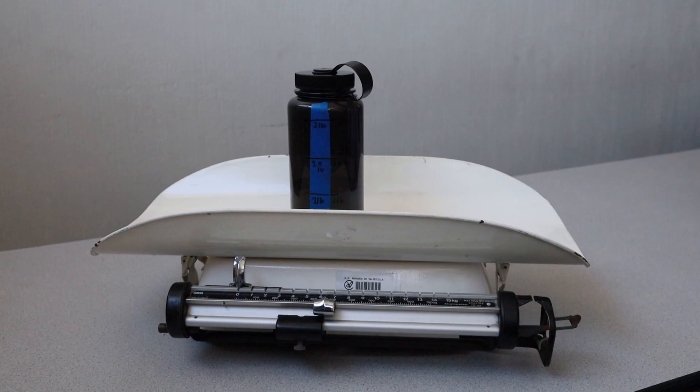Weigh the water. Note that the mass of the container the water is in may lead to an incorrect weight measurement. If possible, use known volumes of water placed in a container of known weight or place the known volume of water in very thin-walled and light containers. The weight of the water should be accurate within 100 grams. If not, recalibrate the weight using calibration protocol described previously.